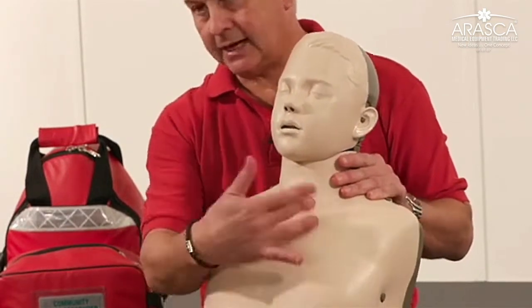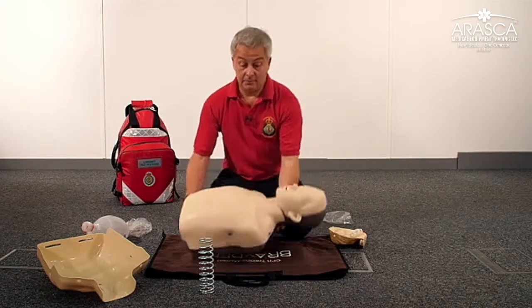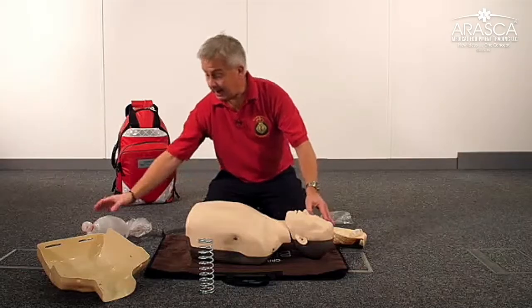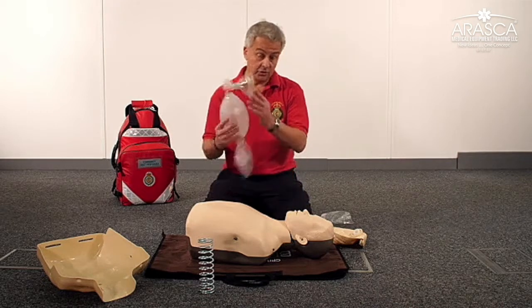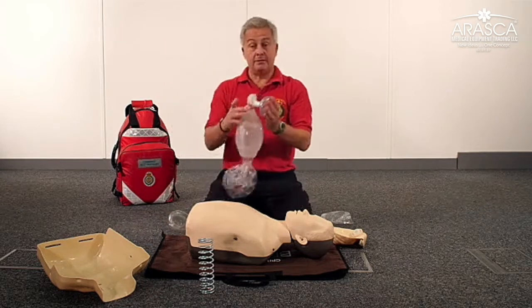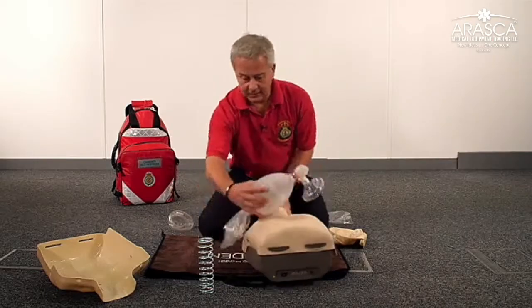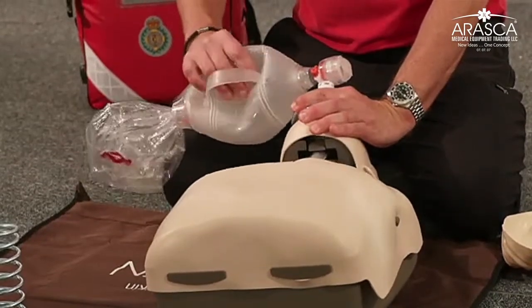The lights work in exactly the same way as the adult mannequin. The force needed is roughly half the force required for the adult mannequin, and you can also ventilate it in exactly the same way. You could use the adult mask if you wish, but if you want to be more realistic for ventilating a child, you can use a bag valve mask with a junior mask, and the mannequin will work perfectly well with representative chest rise.